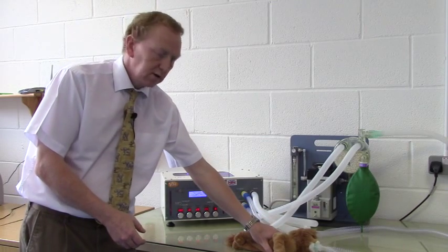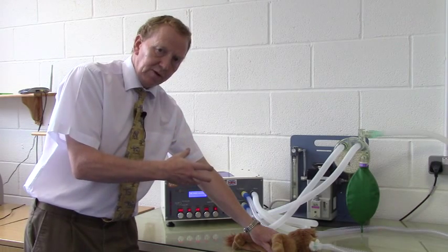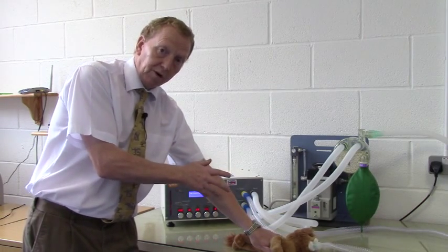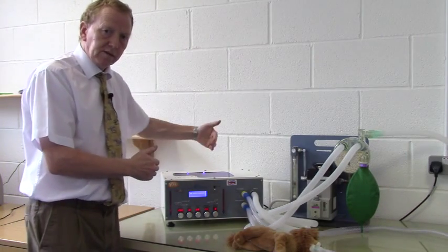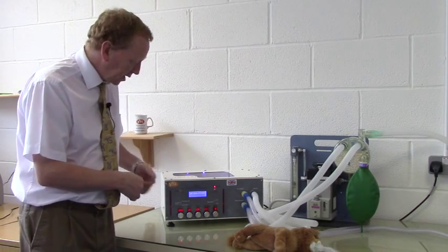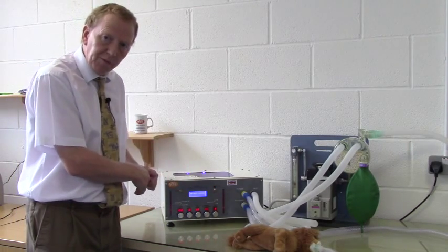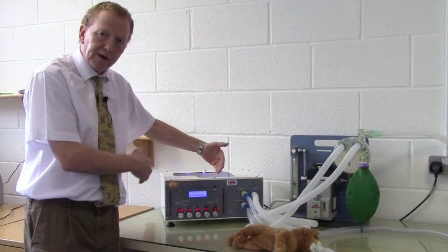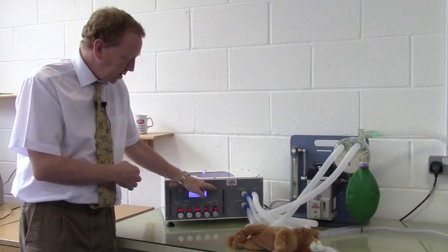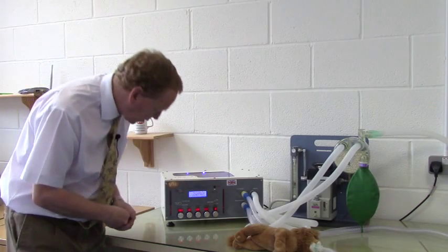If I occlude this now and restrict movement of the chest, the 150 mils is delivered into a smaller volume and so the alarm will sound because the pressure will rise. In that instance, the piston will stop going forward, come back, and try again. You'll see that the alarm 'maximum pressure exceeded' has appeared on the screen and will not be removed — even though the ventilator is ventilating normally — until that maximum pressure exceeded warning has been recognised and reset by pressing the alarm reset. And now we are back to where we were, with an airway pressure maximum of 11 or 12 and a respiratory rate of 15.